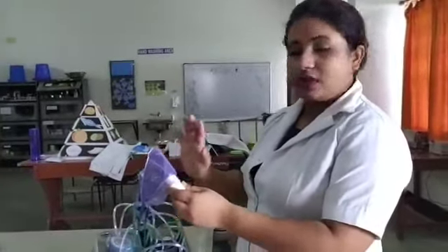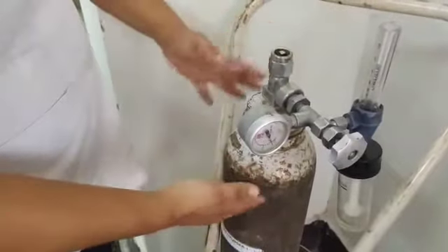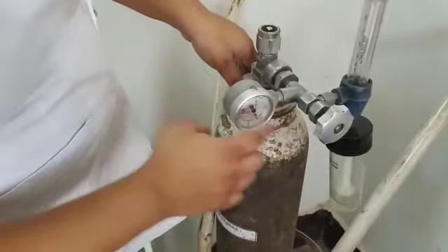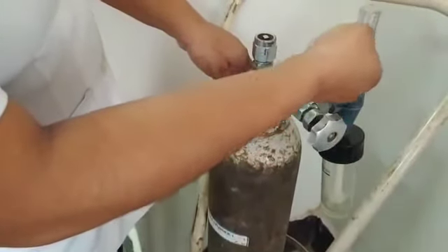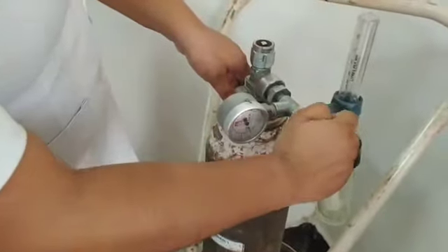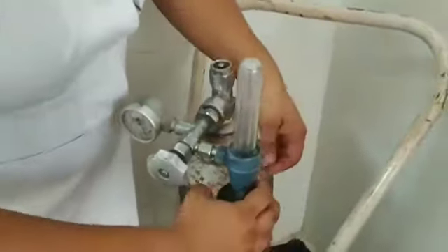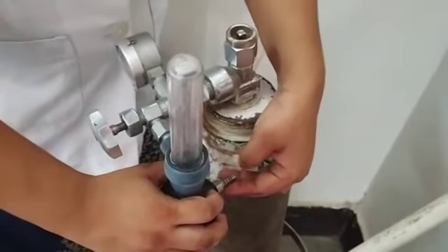We also have nasal prongs. Now I am going to describe the parts of the Oxygen Cylinder. This is the pressure gauge, this is the humidifier, this is the flow meter through which we can know how much oxygen is flowing, and this is the regulator through which we can minimize or maximize the flow rate. Here is the tube connector where we connect the tube to the Oxygen Mask or nasal prongs.